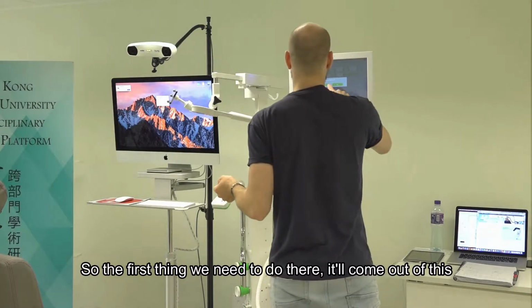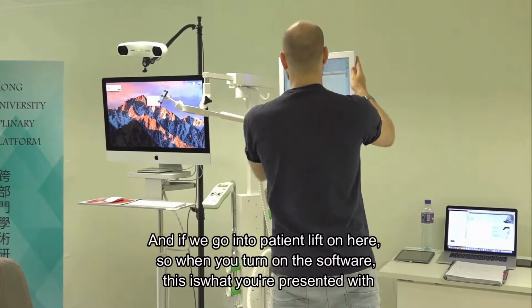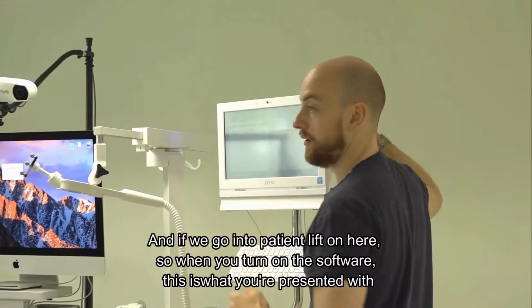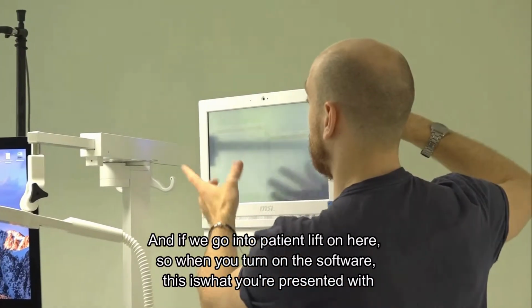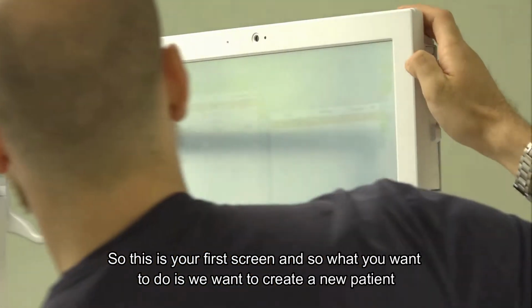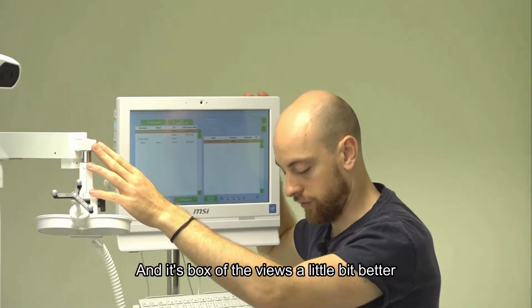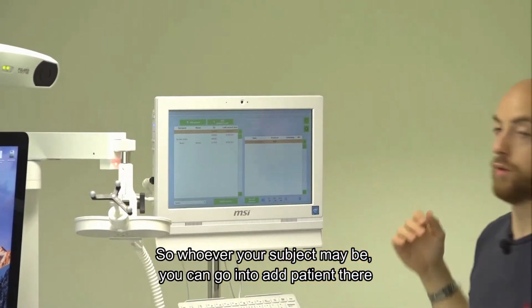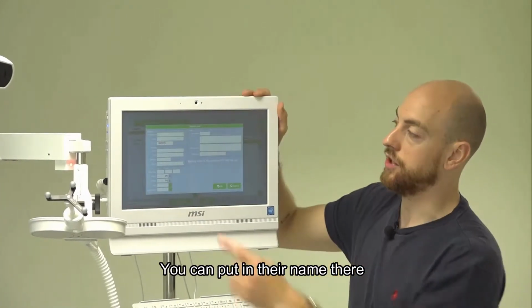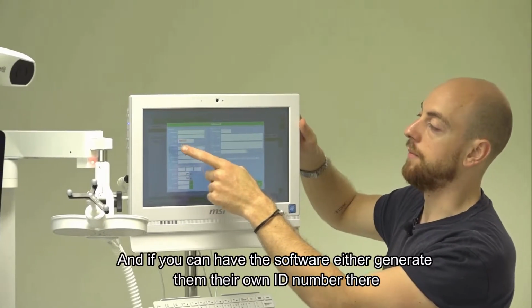So the first thing we need to do is come out of this and go into the patient list. When you turn on the software, this is what you're presented with. So this is your first screen. What we want to do is create a new patient. I'll move this back so the view's a little bit better. Whoever your subject may be, you can go into add patient, pop in their name, and also give them an ID number.